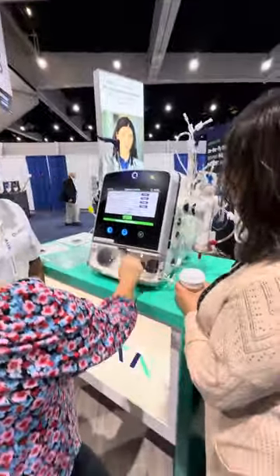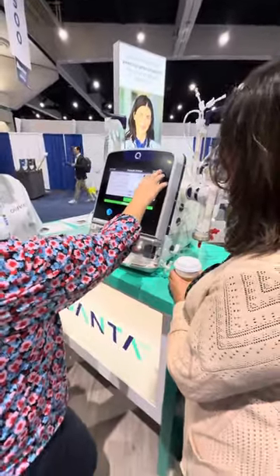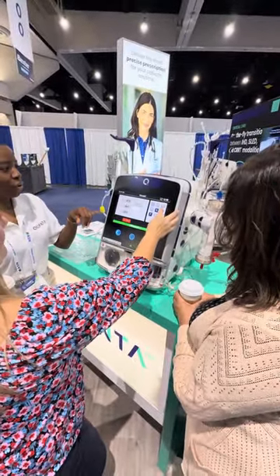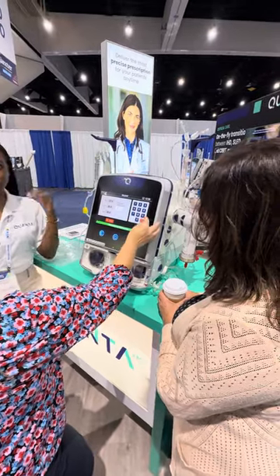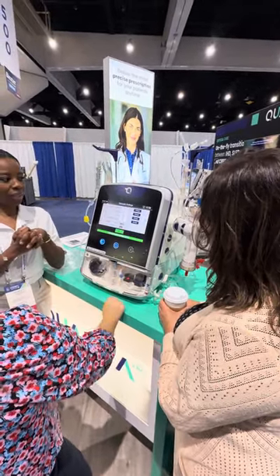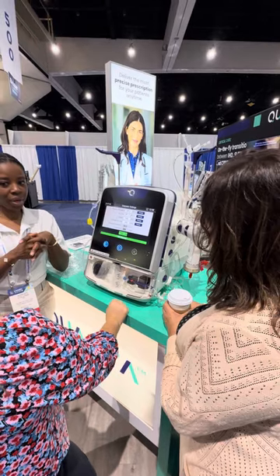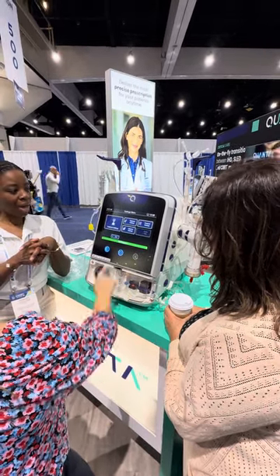Hit your temperature setting so you can see the ranges — your ranges are 35 to 37.5 degrees. Once again, you can only pick the values available to you. It's a safety feature, so it locks out over there, and home is on the left.